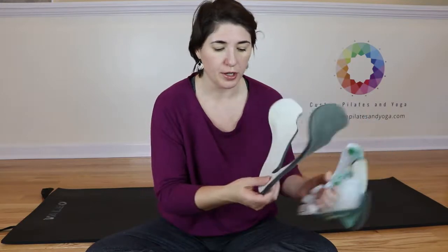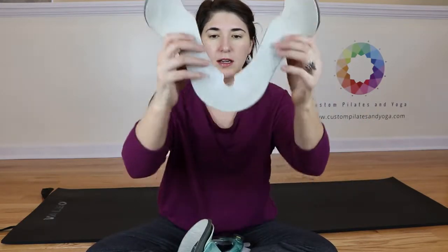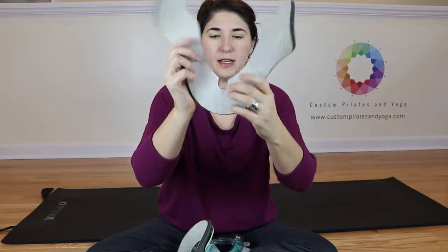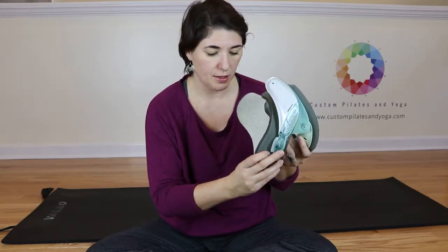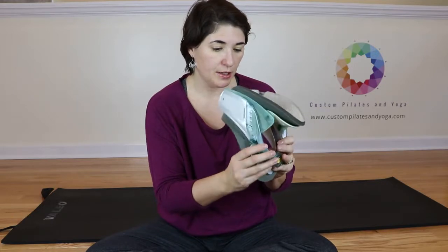Now for the bottom part, we've got this notch at the base cut out for this one. And that goes right where your adjusting piece goes. So fit that down there at the bottom.